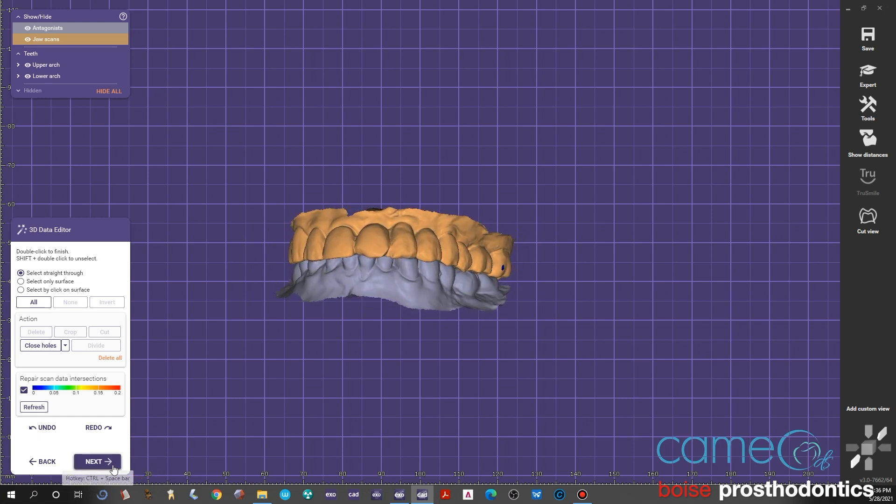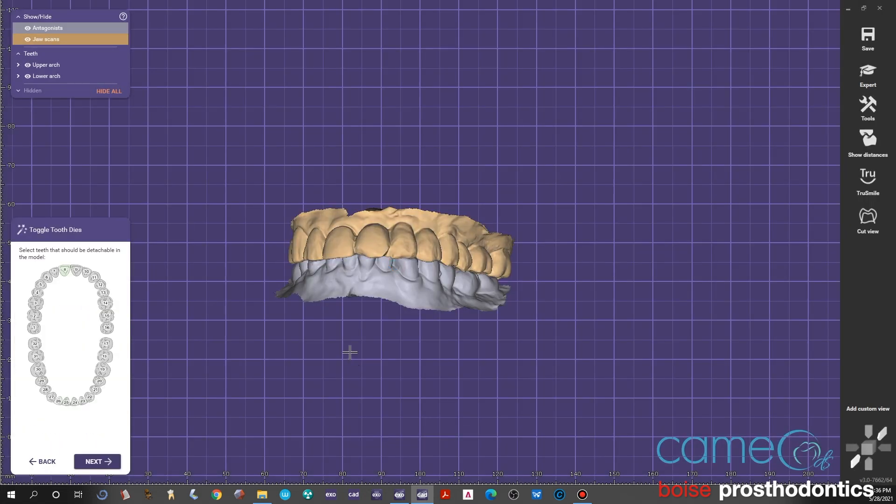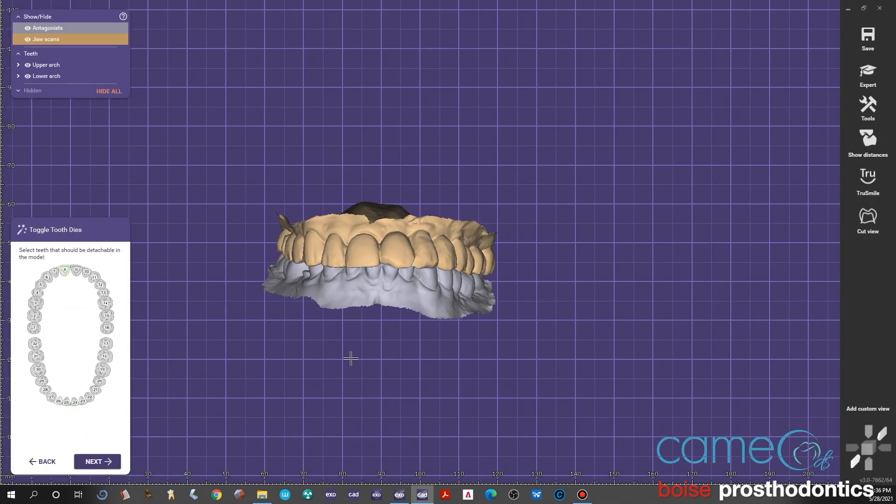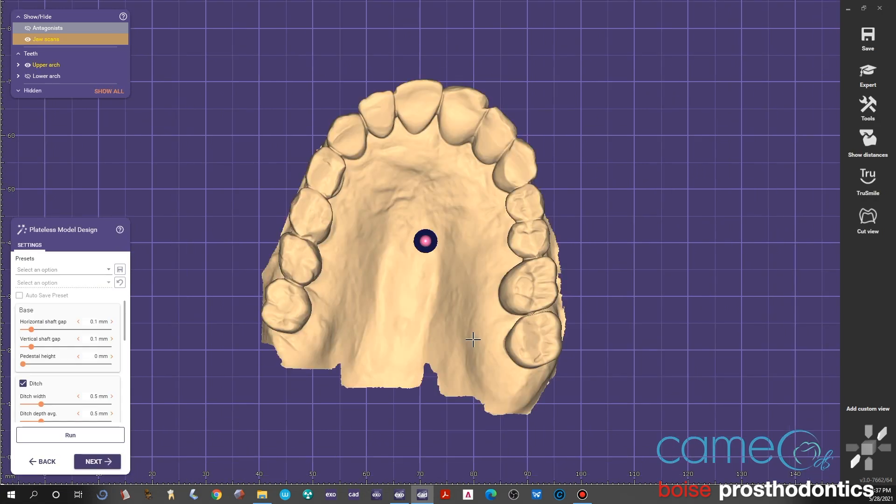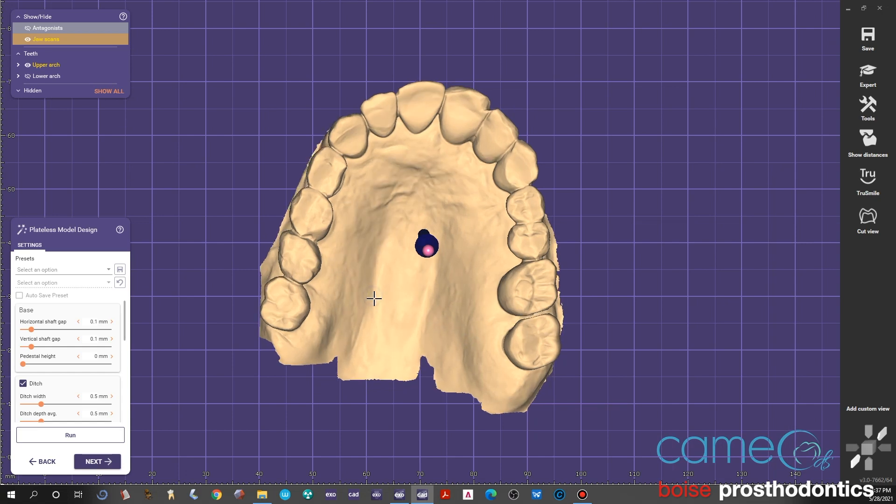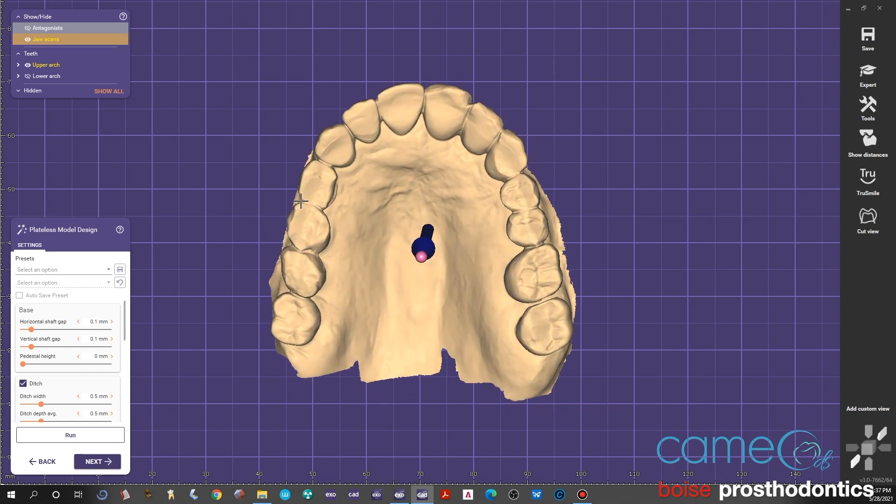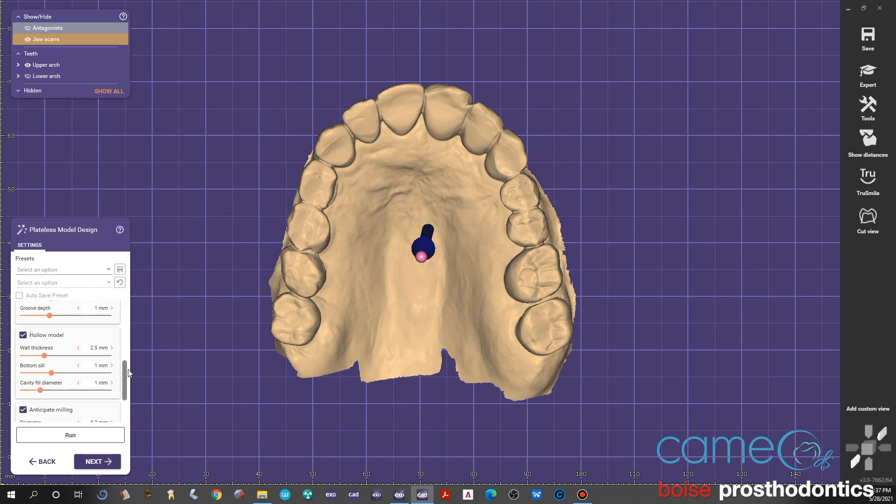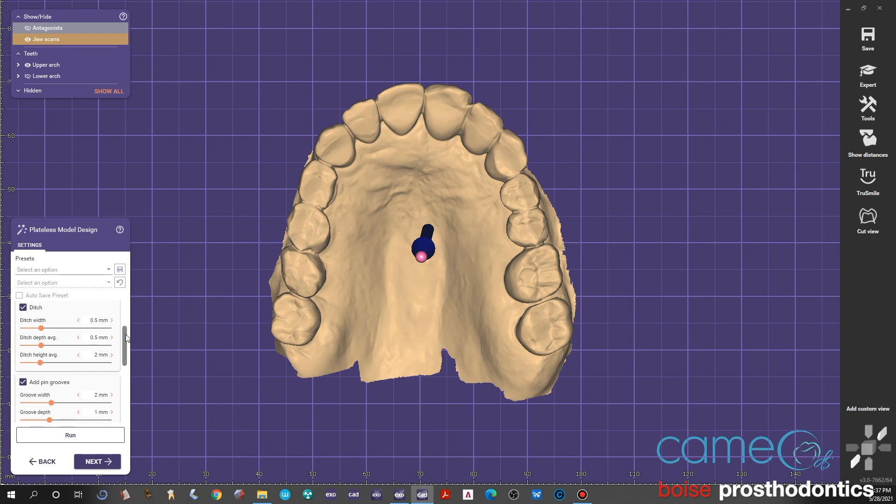Now that we've trimmed that model, we can go next again. There's a lot of preset settings here. It talks about don't modify the scan data. Sometimes the teeth, when they align in the scan, they're overlapping and that doesn't really happen in real life, so you can modify or just tell it to not modify the scan data, which is what we usually do. Here you can make dies out of the selected teeth that you have—we don't need to do that, so you go next. These are preset settings on how to form the models. You can rotate the model to where you feel is a better insertion point—that's where it builds the base up in the maxilla or down in the mandible. We want a hollow model—we want to have about two and a half to three and a half millimeters thick. It's naturally set for two and a half millimeters thickness.